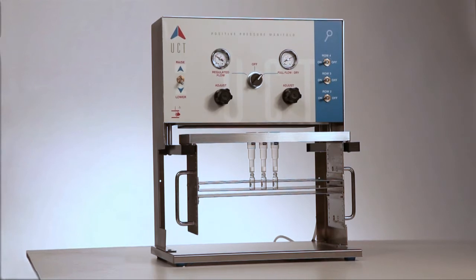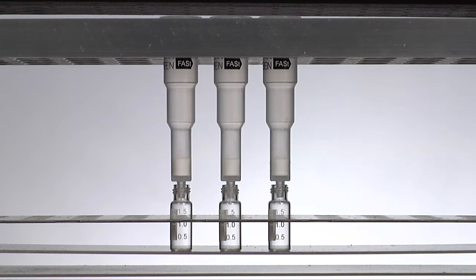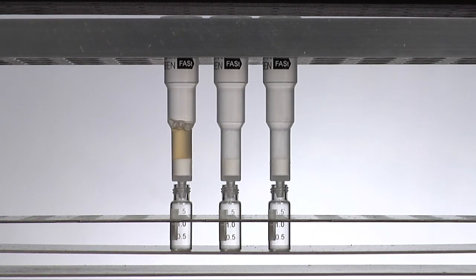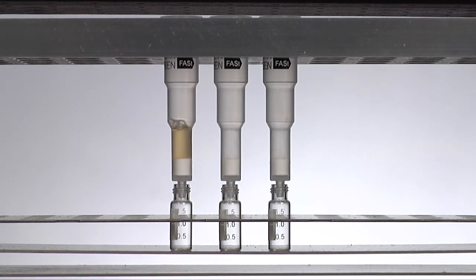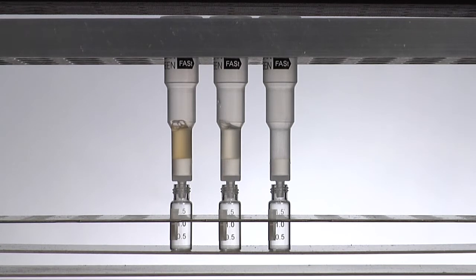What we're going to do is a demonstration of different samples. First, a sample that has been diluted 1 to 1. Another sample that has been diluted 1 to 5, and then a third sample that has been diluted 1 to 10.